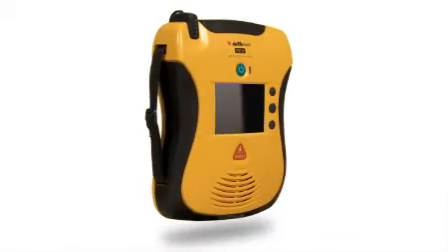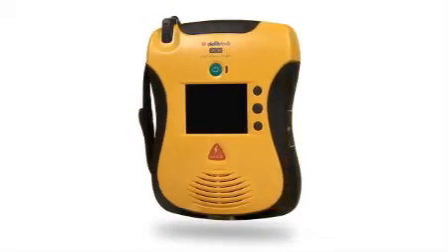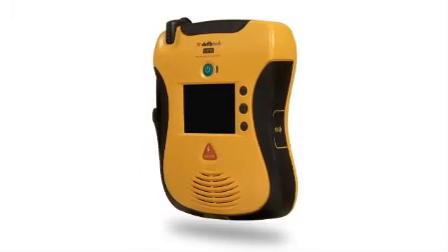And in an emergency, being able to see what you need to do gives you that extra boost of comfort and confidence. You can see it for yourself over the next few minutes as I take you on a guided tour of the View, an exciting new breakthrough in life-saving technology. Why is the View such a revolutionary breakthrough in AED technology?